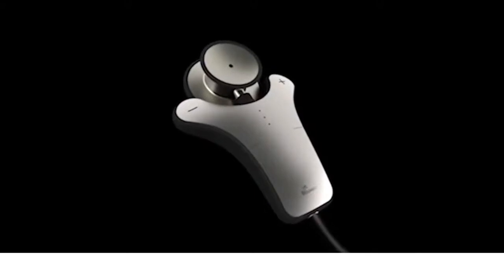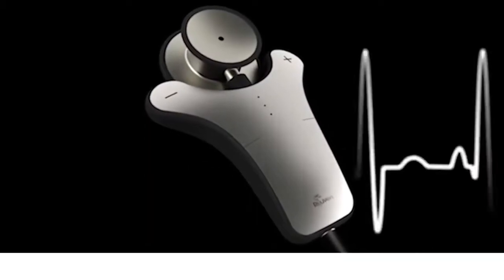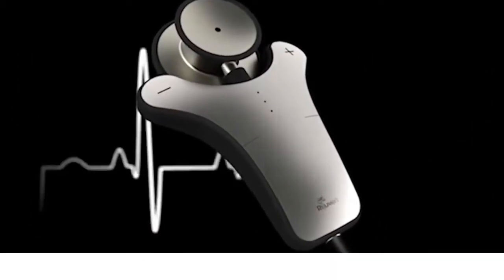Cardio Sleeve is the first FDA-cleared stethoscope add-on device that overcomes the shortcomings by acquiring both ECG and digital heart sound simultaneously.